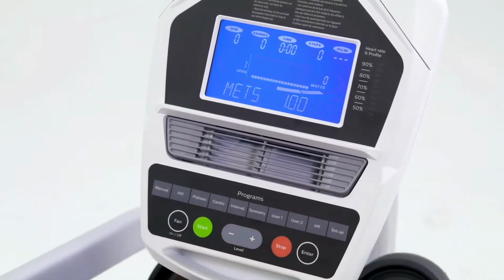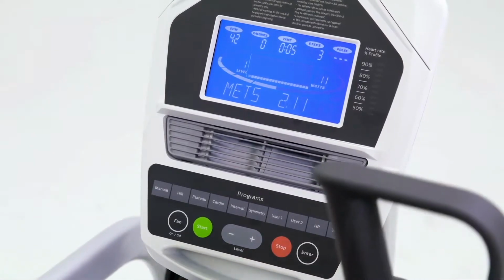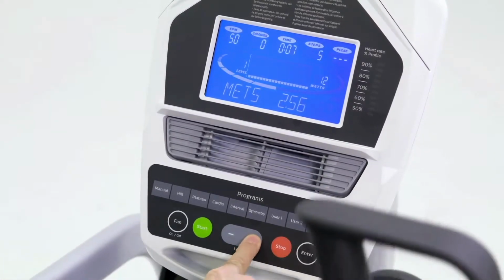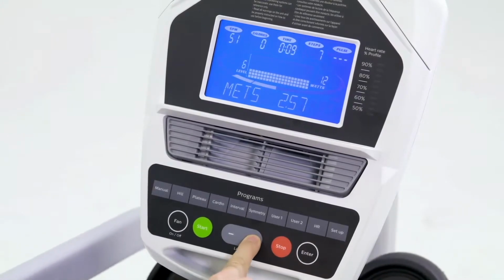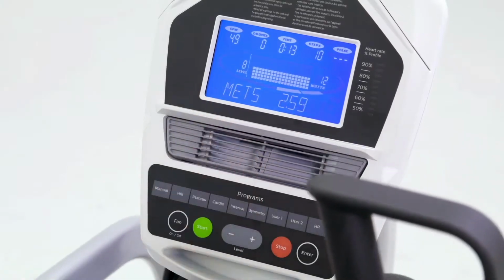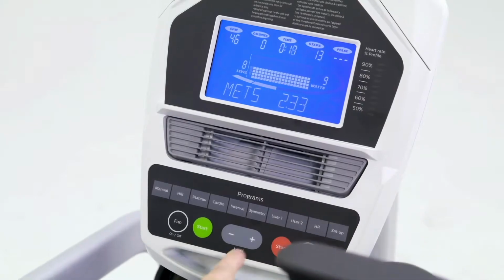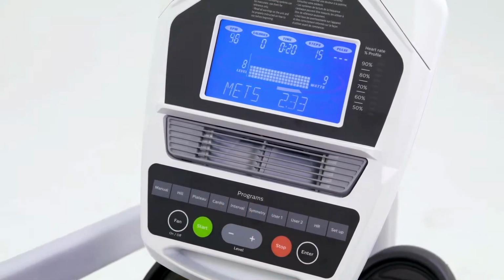But during any program, when I press start, for instance, and I'm in a constant resistance mode and just running, we increase the levels. We'll be able to see the watts. We can see the distance of the left and right pedal. So if I go short, it shows that. Again, if I hit symmetry, it'll turn that feature off.